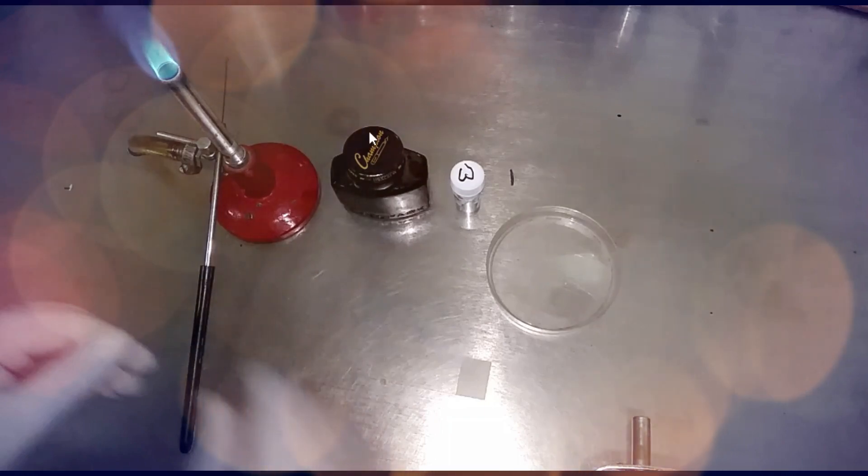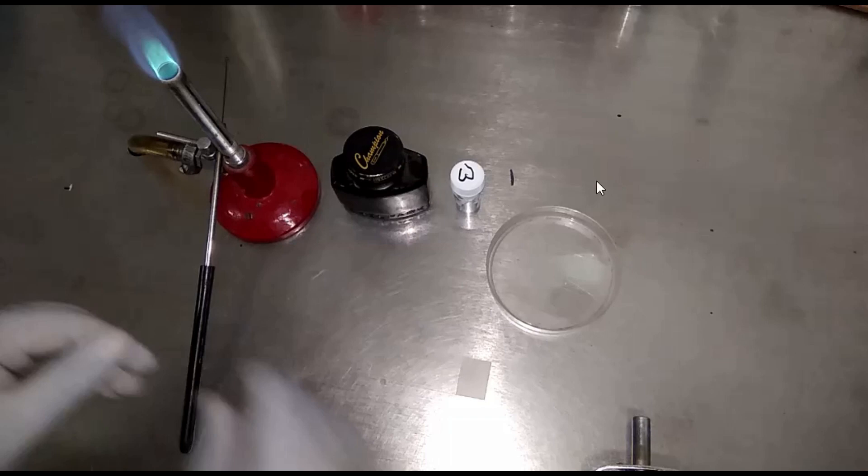Let's learn about India ink preparation procedure. Requirements: clean grease-free slide, cover slip, CSF specimen. This is the CSF container.